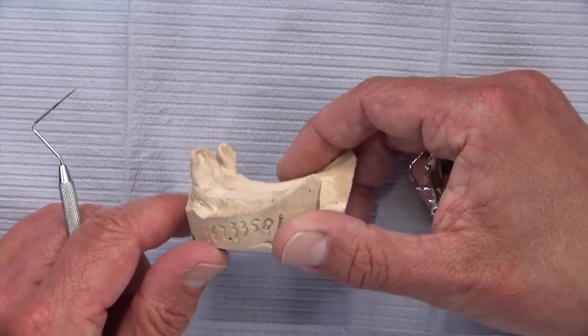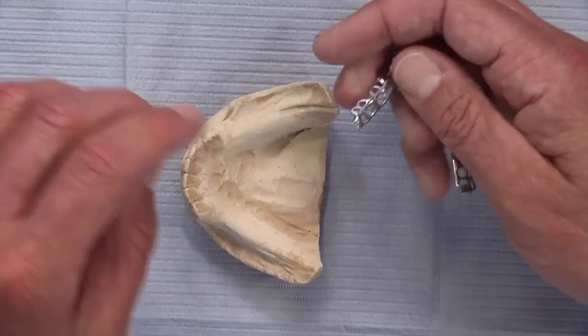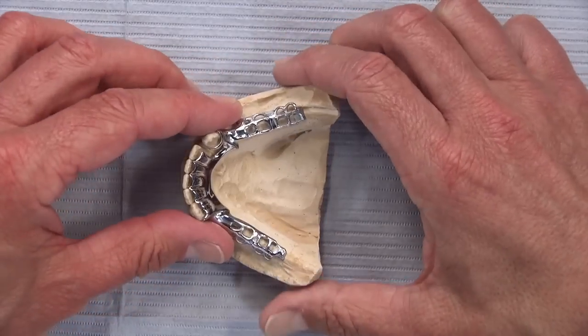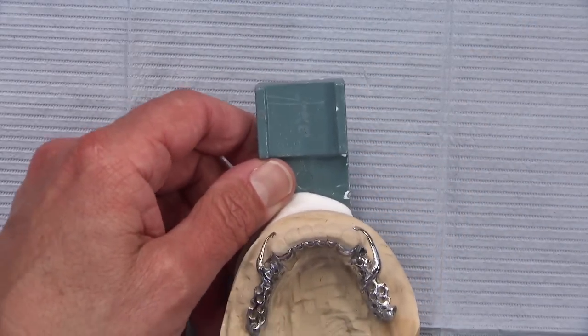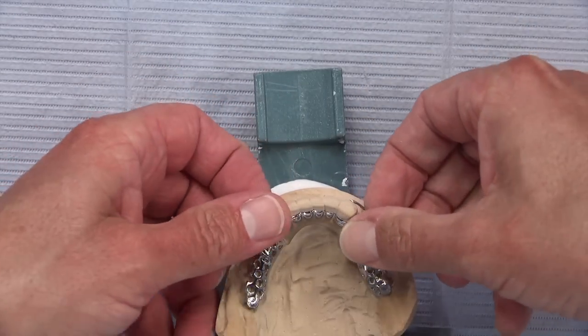It won't cut down and strip the gingiva away from these teeth over time when this partial is totally tissue-borne and not tooth-borne at all. It's really too bad that there are no rest preps on that particular one. If we look at another slippery slope model, this patient's got a bridge from 22 to 27.